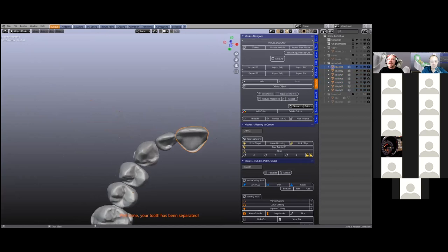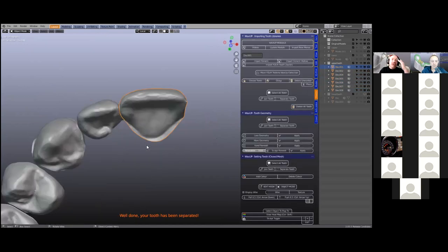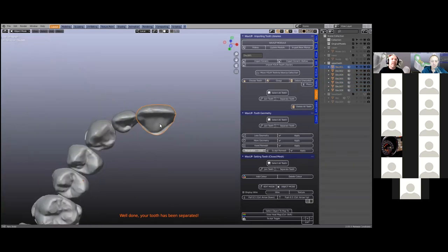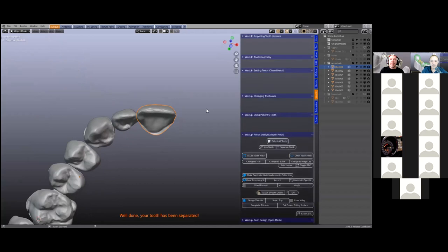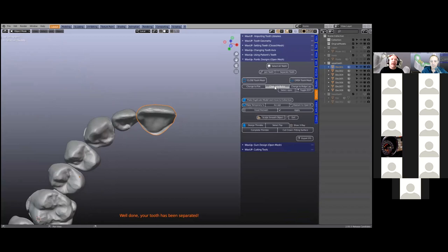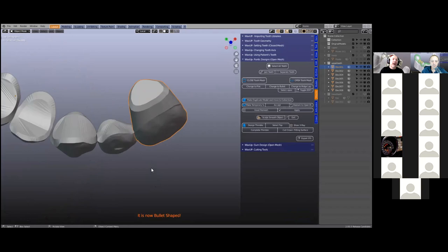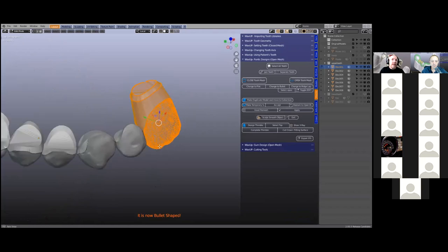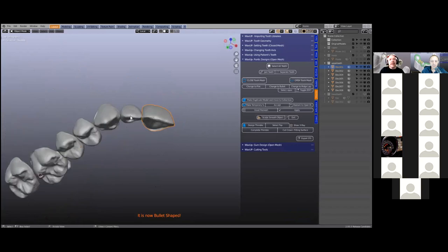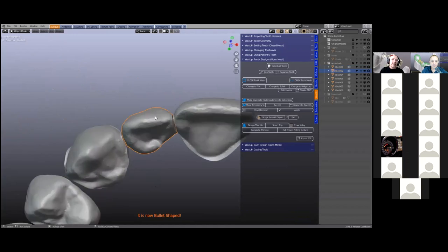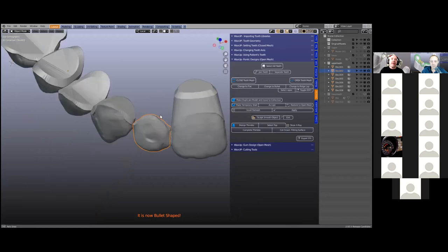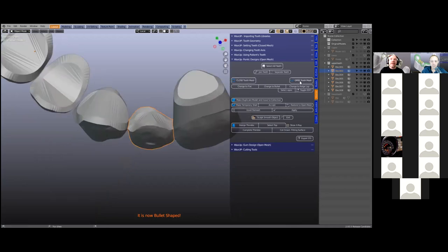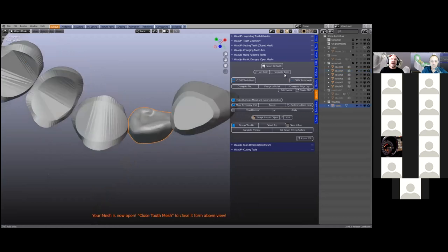Now that they've separated, in the wax up module we're going to change this to bullet shape. If we're changing to bullet shape, we need to move it to a certain direction, because it extrudes from my eyesight into the computer. So we're going to go to the blue menu over here and change to bullet shape. Look what it's done — it's extruded this way around. In edit mode it looks something like this, and that's what we want to do. We're going to extrude these teeth a few times. If you aren't familiar with the wax up module, we can open these — if I wanted to open this tooth I can open the mesh. So like, just off topic, if we wanted to make a temporary shell, I can click on this one and make a temporary shell and then smooth it on the inside.